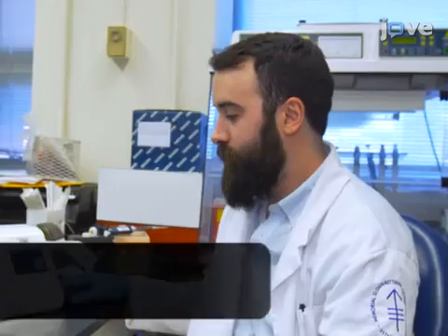The main advantage of this technique is that it is a rapid method that can be used in a point-of-care setting. Demonstrating the procedure will be Sam Kaplan, a technician from our laboratory.